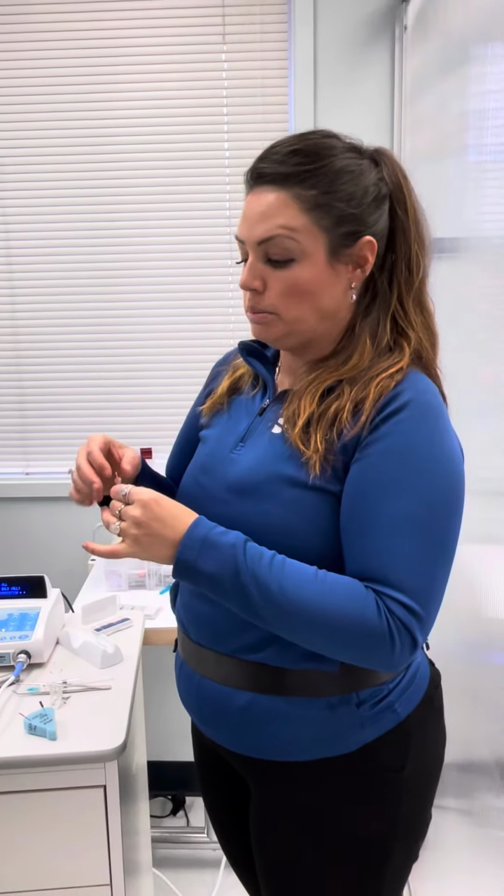So we have 3 different obturation styles. This, using the down pack with this, or GuttaCore. But essentially, this is what we're going to be doing in your guys' office right now.